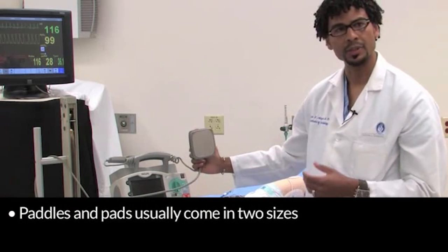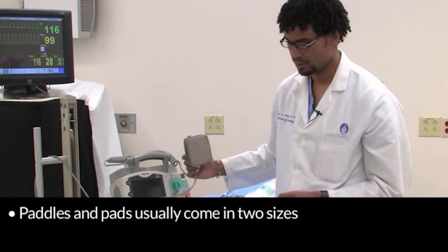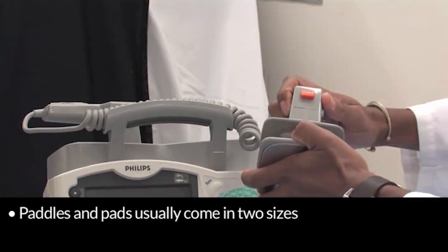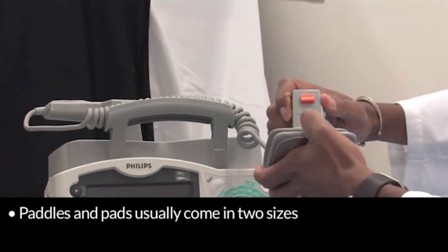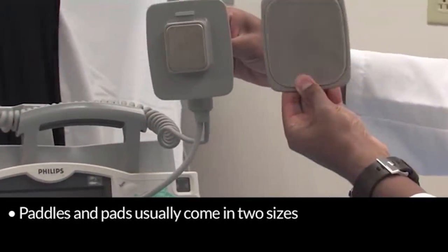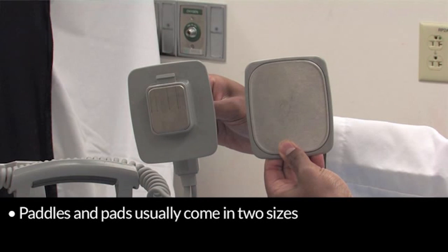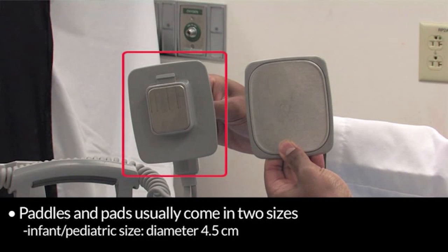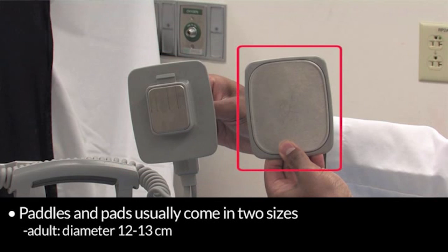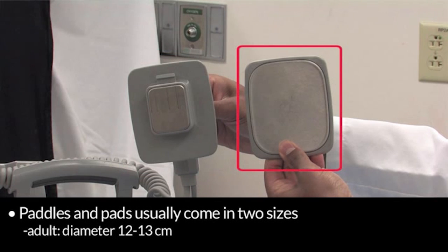Paddles and pads come in two sizes — most machines have two, and our machine has two sizes. There is an infant or pediatric size and an adult size. The infant or pediatric size has a diameter of 4.5 cm, whereas the adult size has a diameter of about 12 to 13 cm.